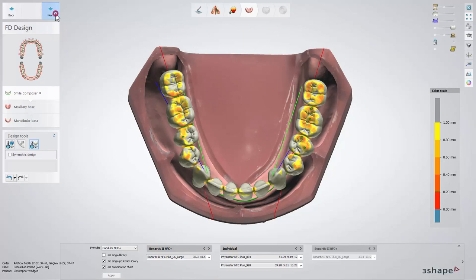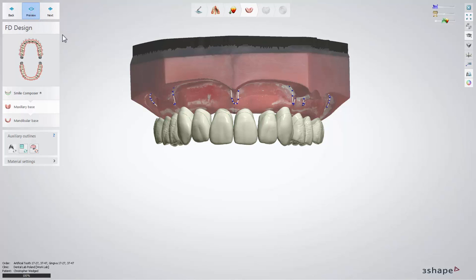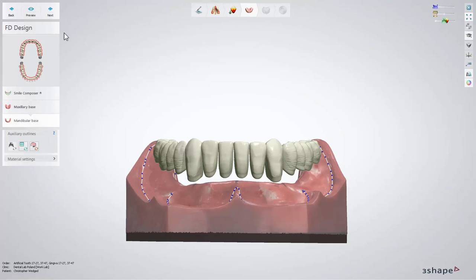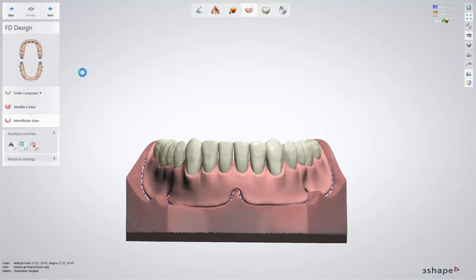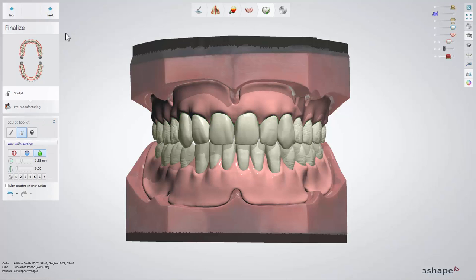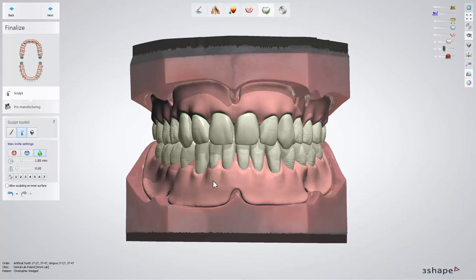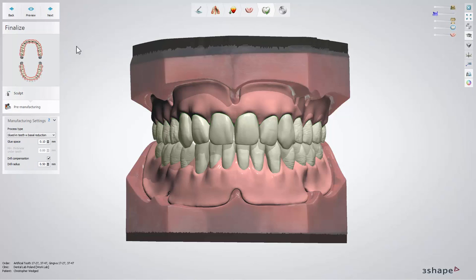If you are happy with your design, click Next and move further to create denture bases. The base was already selected; however, we still have the possibility to pre-define the material settings. To generate the design, choose the Preview button. After that, you can move to the Mandibular Base sub-step — do the same as before and click Next to move further. At the Sculpt Toolkit sub-step, you can add more material near the cervical area or on the palatal suture, and smooth the surface. In the Pre-Manufacturing sub-step, you can pre-define the process type and other settings for the final restoration, and preview these settings by clicking the Preview button.